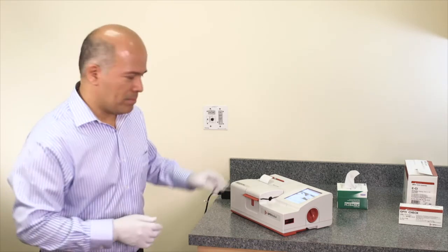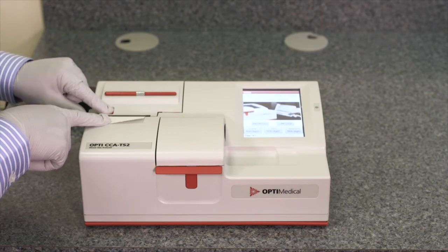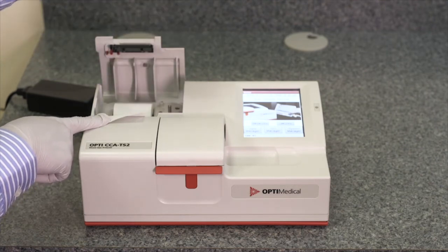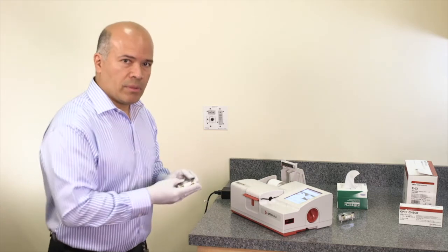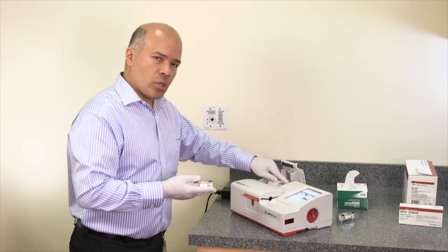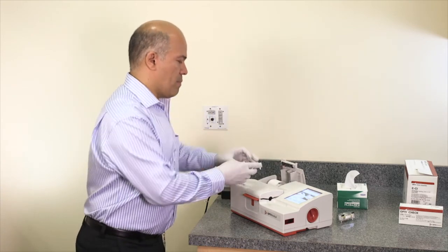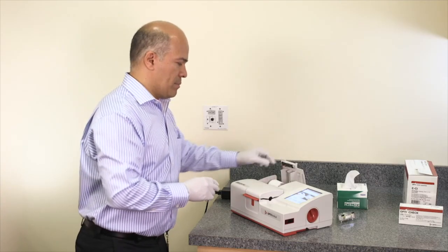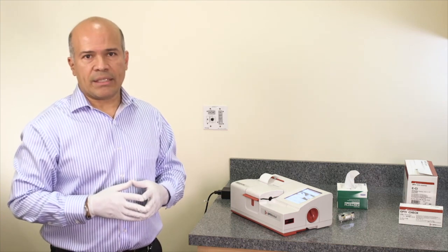To perform maintenance on the OptiCCA-TS2 analyzer, replace the peristaltic pump. The peristaltic pump is located in the printer area. Open the printer cover by pressing the red button. Remove the pump by holding it on the plastic ends and pulling it out, then discard it according to local regulations. Insert the new pump in the peristaltic pump area — the shaft on the analyzer may need to be rotated to match the key on the pump. Press the pump all the way down, making sure it is firmly connected, then close the cover. This completes the maintenance of the OptiCCA-TS2 analyzer.